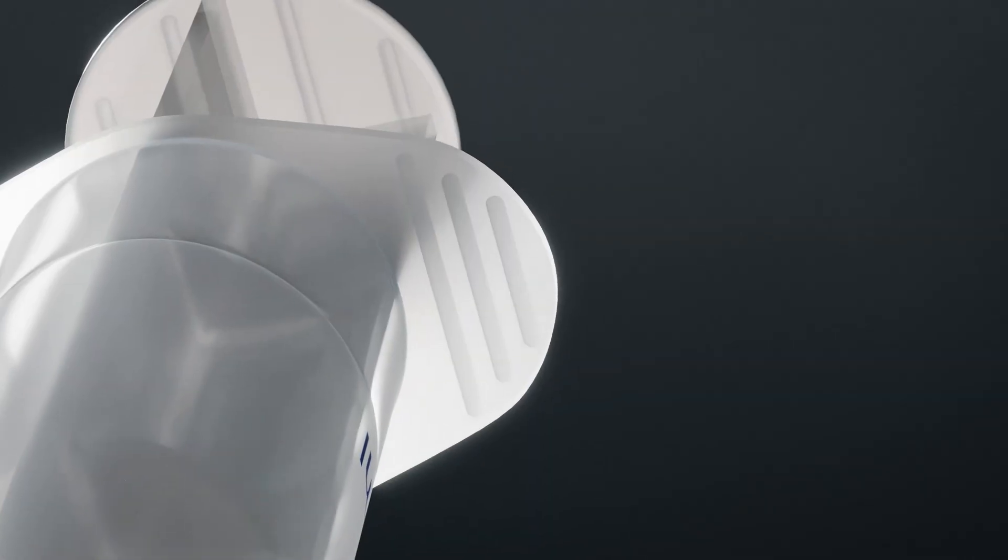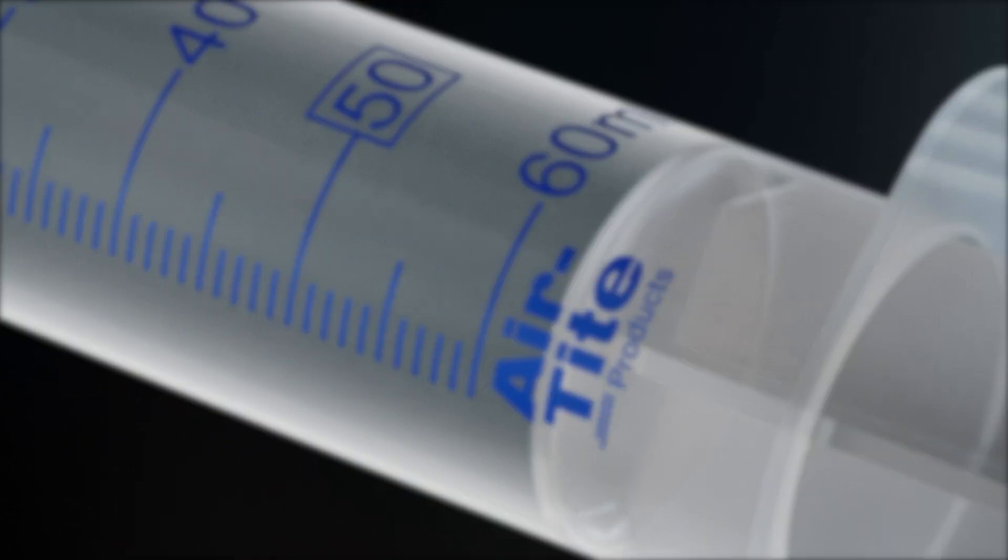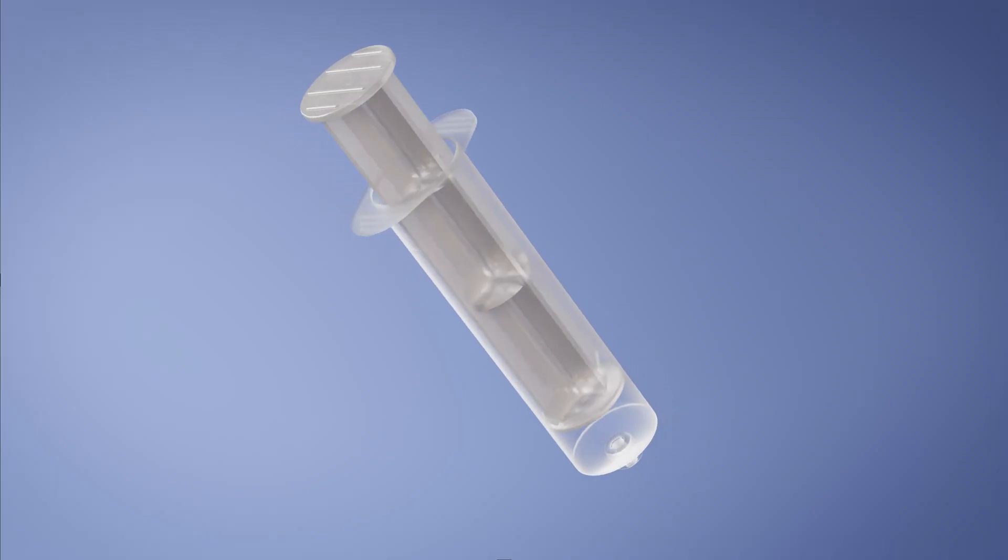Grip finger wings provide secure, non-slip handling. The plunger safety stop helps to prevent accidental plunger removal and spilling. Each box contains 30 sterile, blister pack syringes.